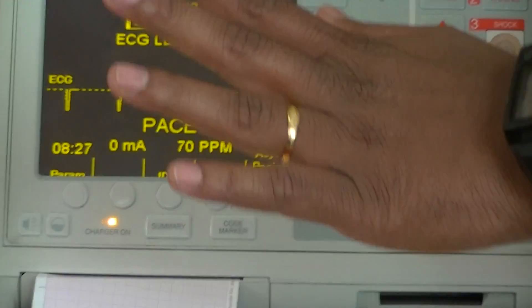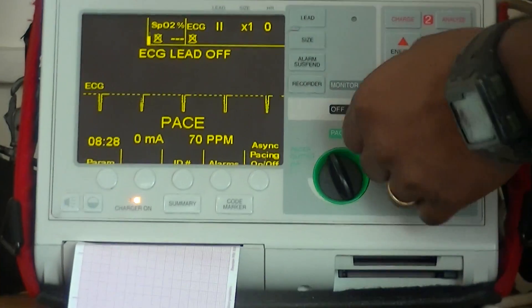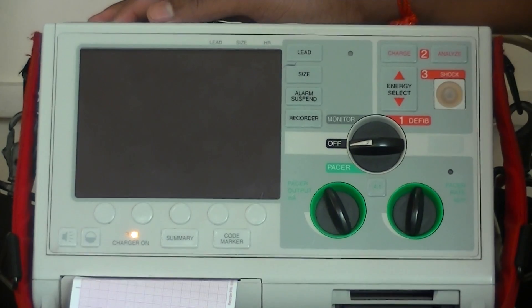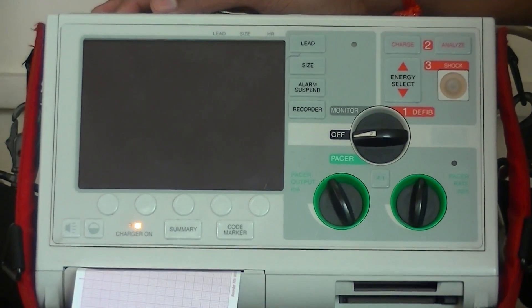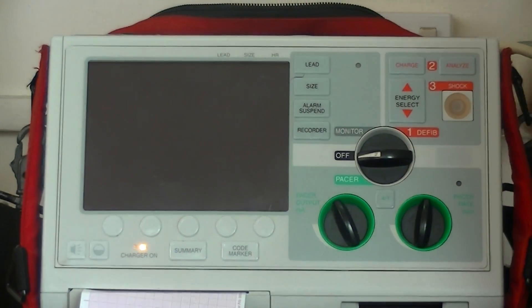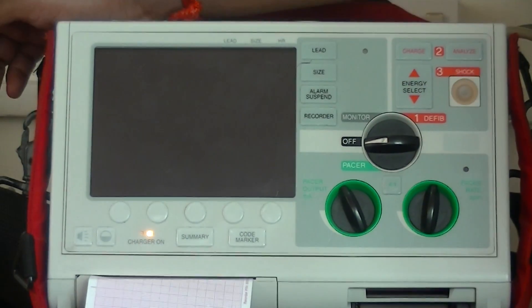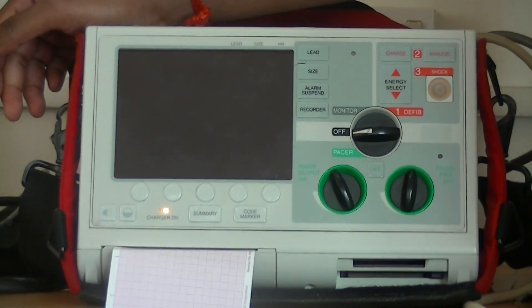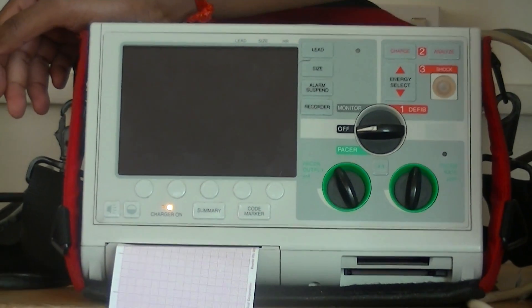Then attach and it goes back to the off mode. That's the basics about the Zoll defibrillator. Have a good day, thank you.